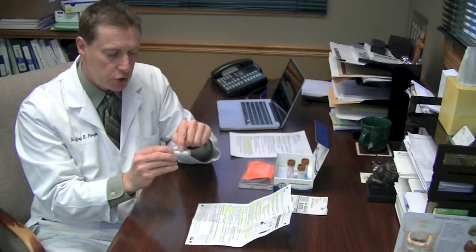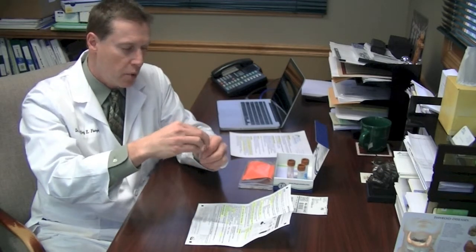Now, what you're going to do is wait 1 hour, and in 1 hour, again, you're not going to eat any of the foods listed on here. You're not going to have anything except water. And what you're going to do is take the vial marked H, take the top off. This is a little different than the one with the cotton.